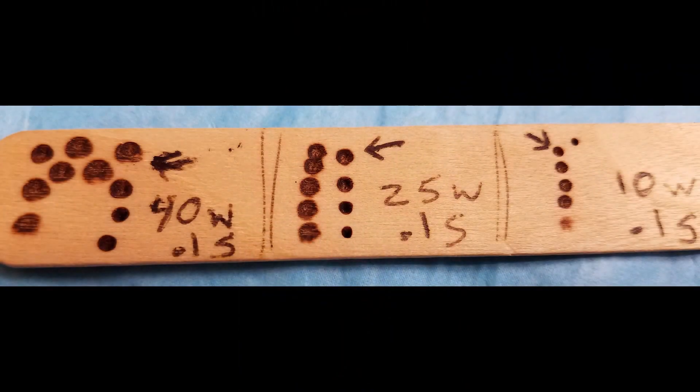So you can see that the key to control of the laser is to set the spot size according to the power you have set. As long as you have two or three millimeters worth of space to work, there's a significant advantage to using it at its highest power because it's the cleanest. If you need to work with much smaller spots below two to three millimeters, then you can turn the power down. For each power you select, you need to select the spot size that gives you the correct beam shape — that gives you control over the laser so it doesn't get away from you, but yet produces a clean vaporization that does not burn and carbonize things as it goes along.